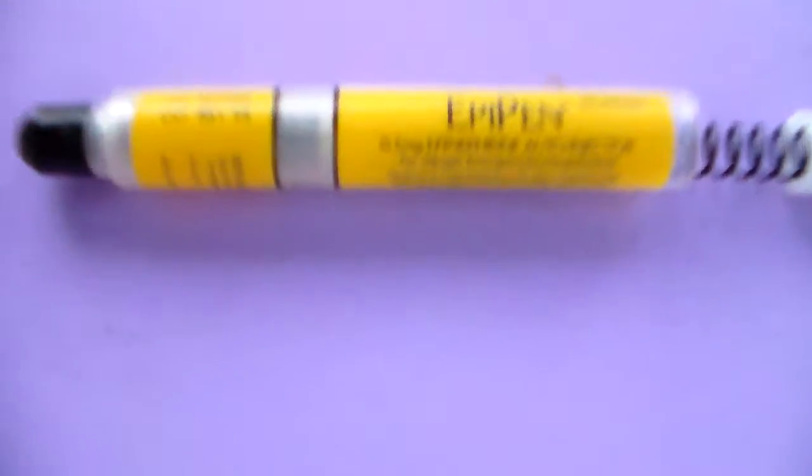How's it going ladies and gents, it's Flak. I'm going to take apart an expired EpiPen.